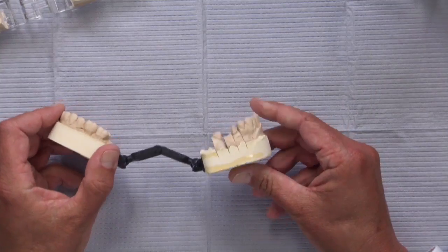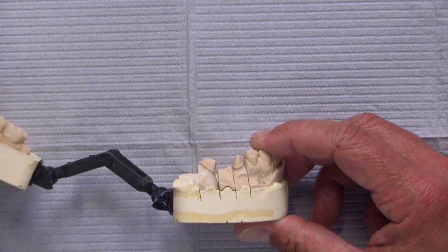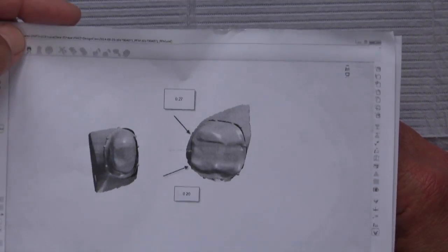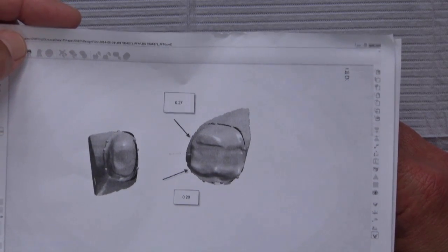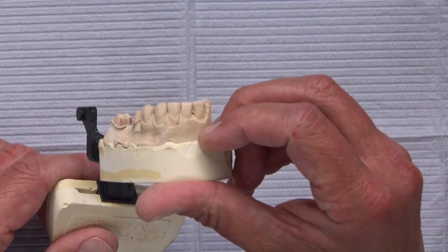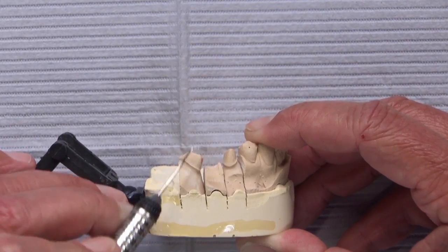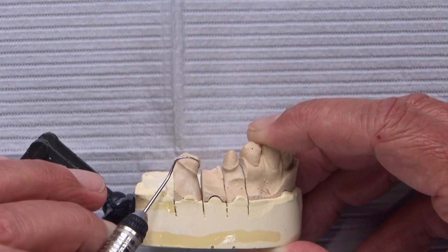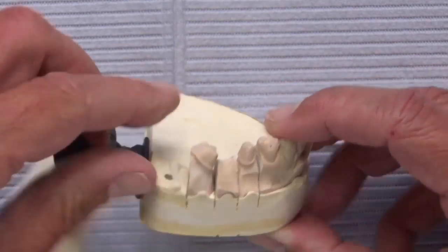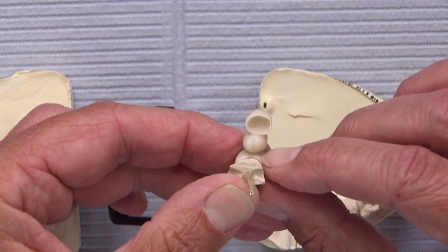This problem is much more common on bridges. Here's a three-unit bridge prep where we've got some undercuts. Looking at the actual numbers: on the mesial of the molar, on the lingual it's 0.20mm and on the buccal it's 0.27mm — two undercuts on the molar, both marked with a red pencil, with the gingival margin in the shadow of the undercut. For this to insert correctly, the technicians have to grind all of that away, leaving a hollow in the bridge.